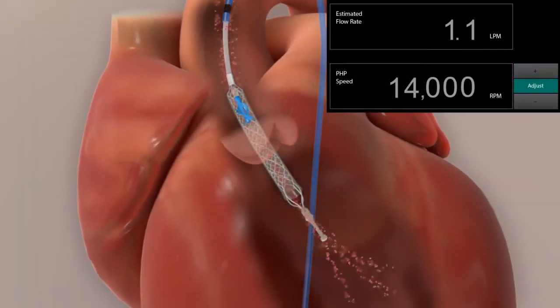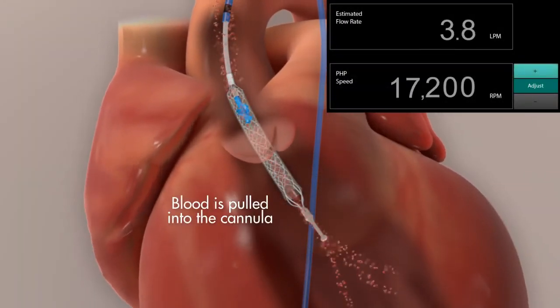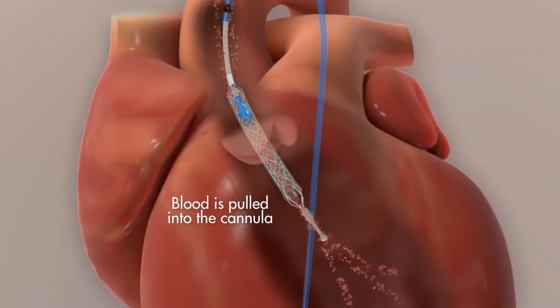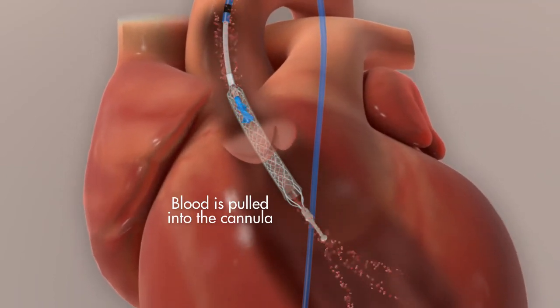As the impeller begins to spin, blood is pulled into the cannula from the left ventricle and deposited into the ascending aorta.